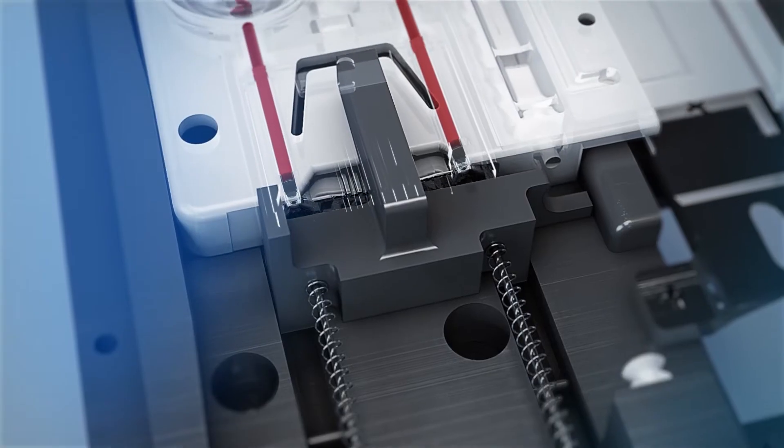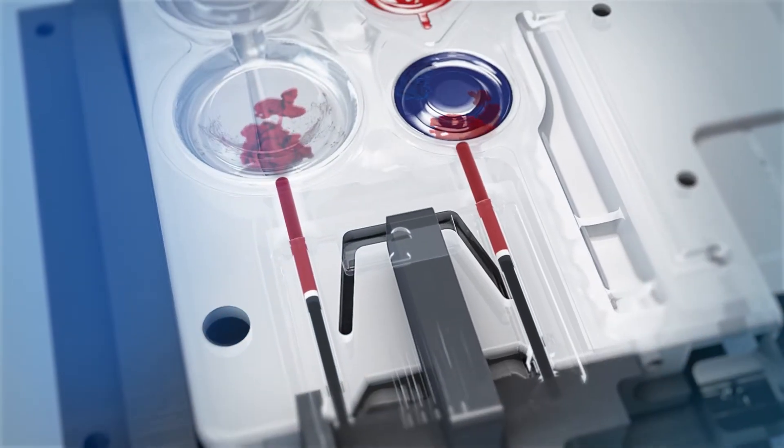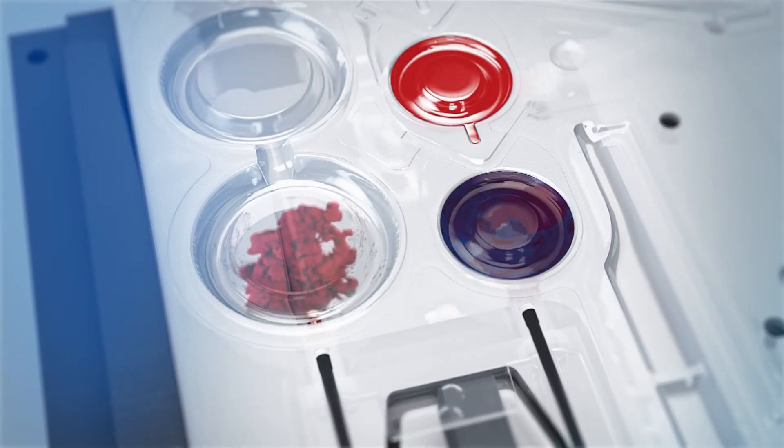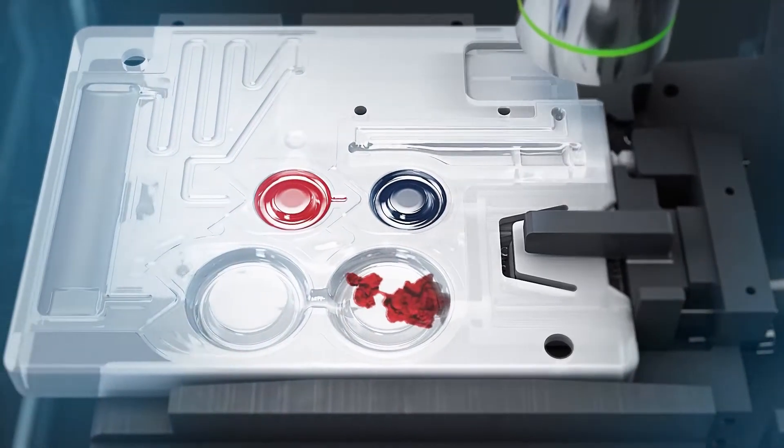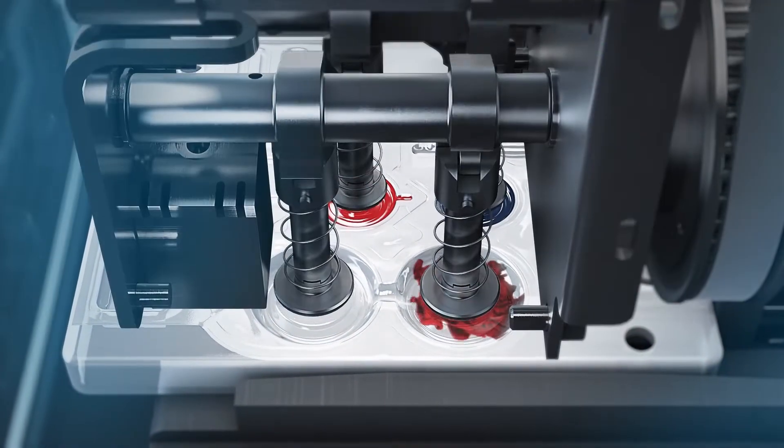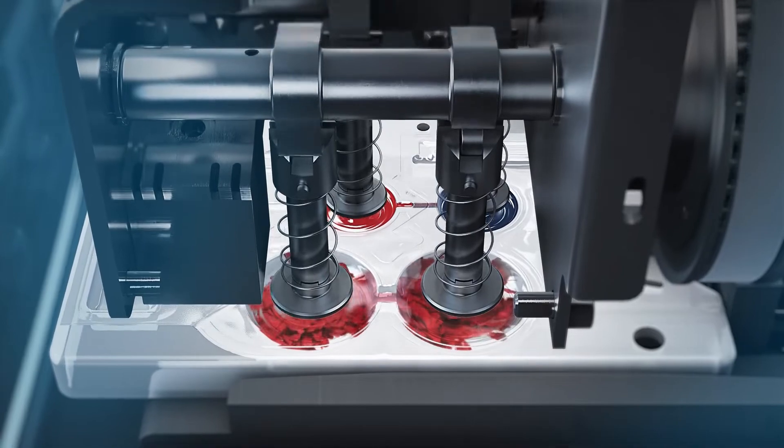During the insertion of the cartridge, the blood sample is expelled from the capillaries into the reagent chambers. It is then mixed with the liquid reagents via actuators pressing on the pressable portions of the chambers.